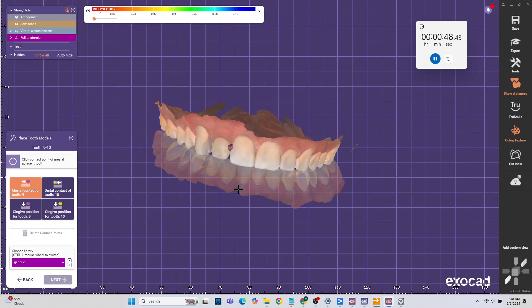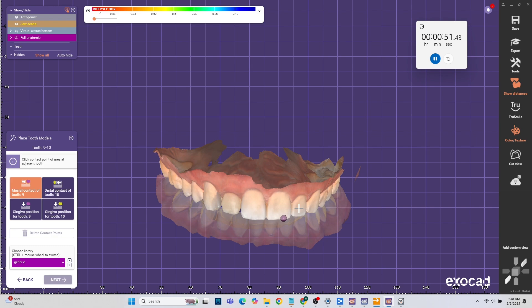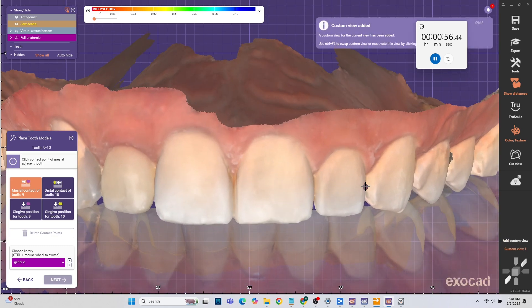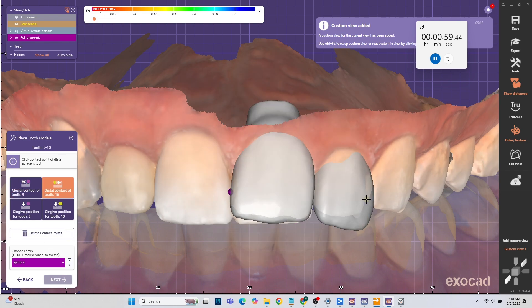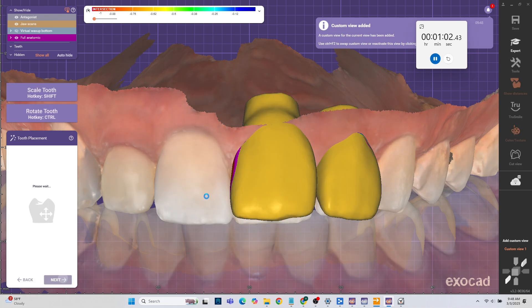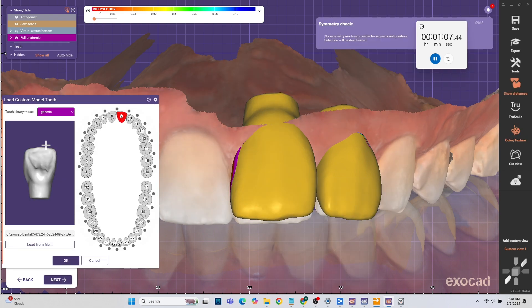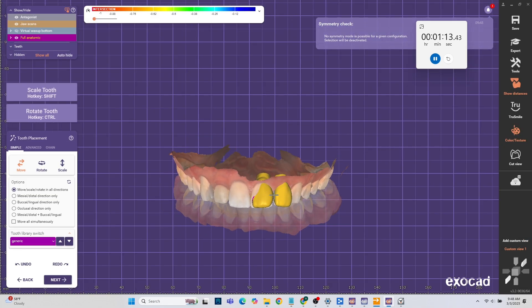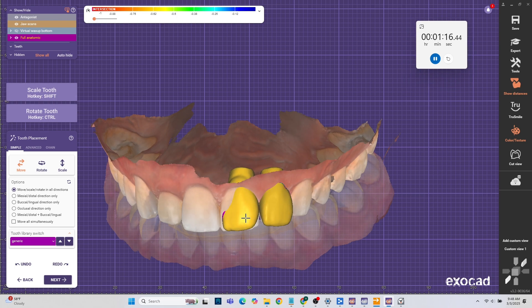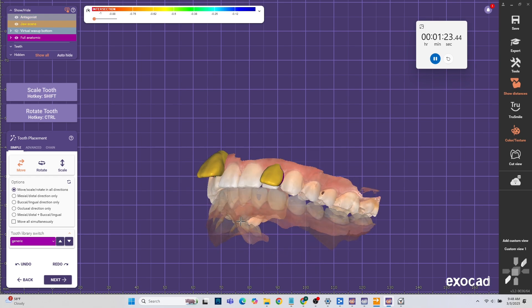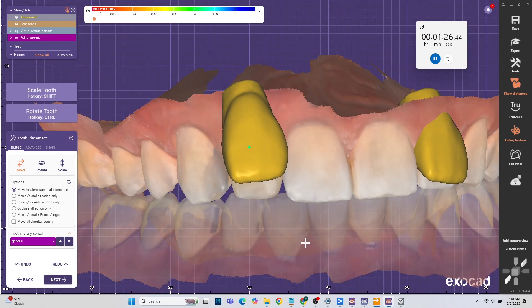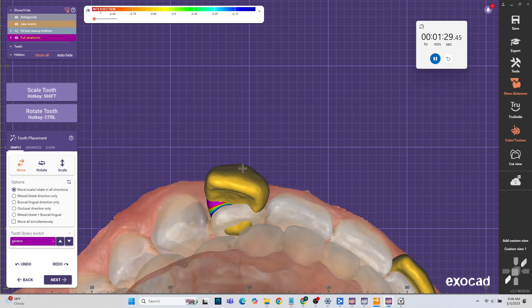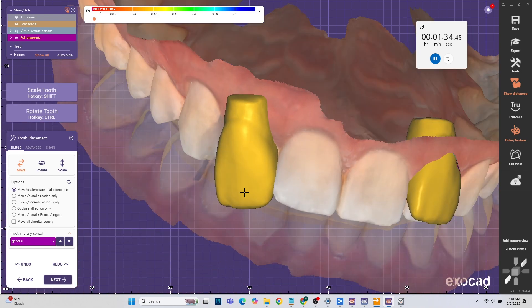Now we're going to choose the teeth. Basically we set it up as two teeth side by side because when you separate them it gets a little bit weird. So our focus is we want to do gingival reduction on the two laterals. For that we just basically change the central for a lateral. You can just hit right click, change the tooth models and you can change it to whatever tooth you want.